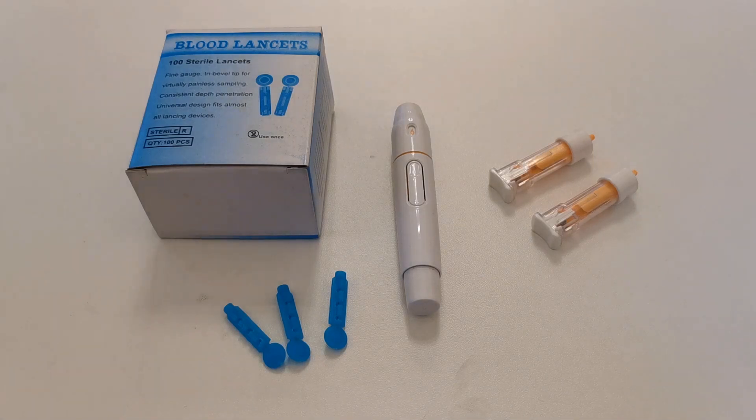Welcome to this ValueMed presentation. I'm Dr. Mike Garsai, Clinical Director of Access Diagnostics, and we're going to run you through some helpful tips to try and get a good sample from a finger lance device.